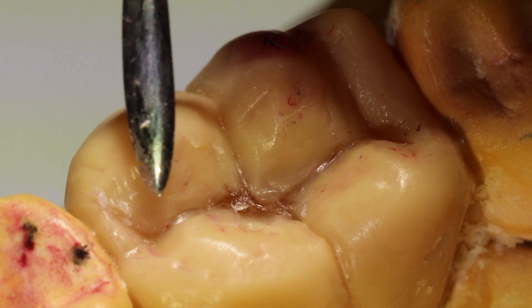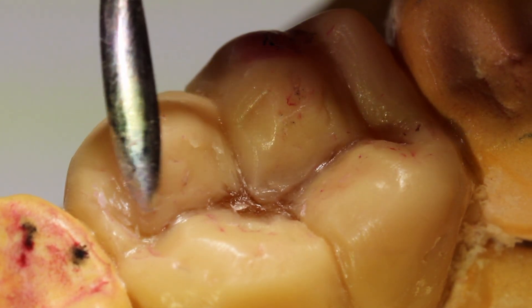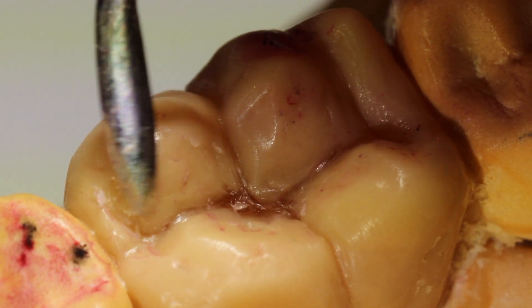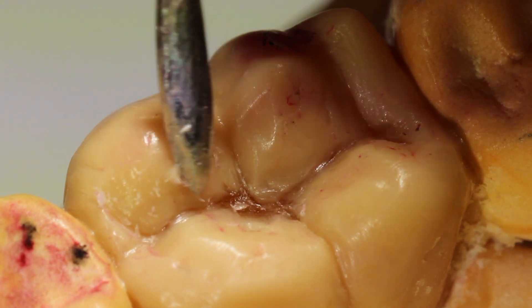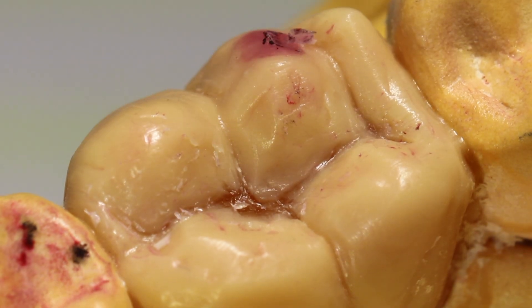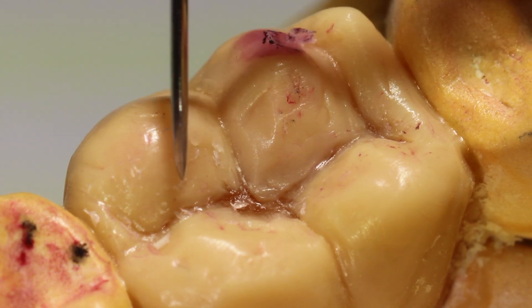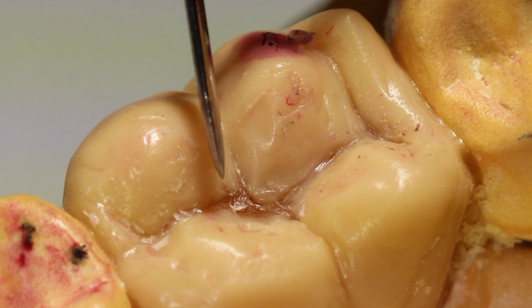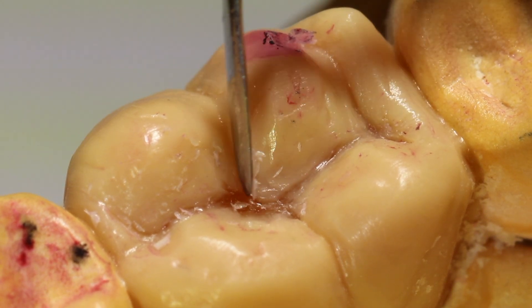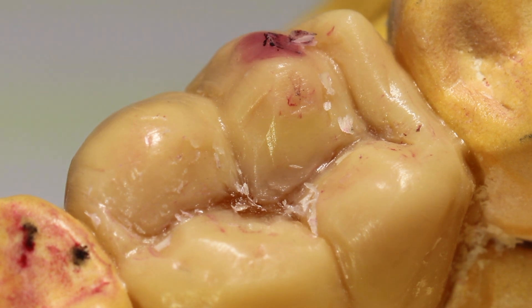The first motion, burnishing, is really used to smooth out the wax. What you're doing is using the side of the instrument to create a little friction that will melt the very surface of the wax to make it nice and smooth. The second technique is cutting — to cut, you turn the half-Hollenbeck blade 90 degrees towards the tooth and physically scrape away little layers. This is great for taking away a lot of wax very quickly.